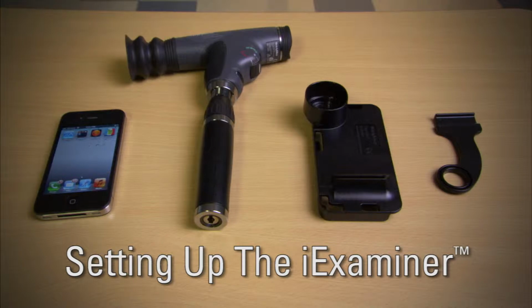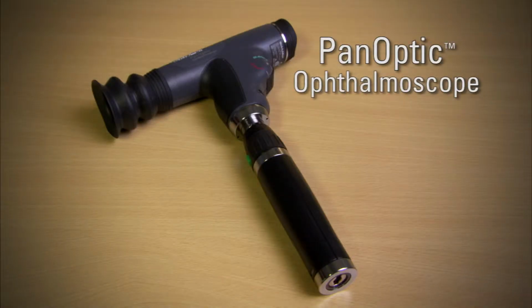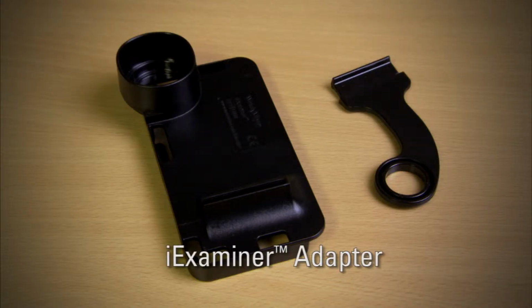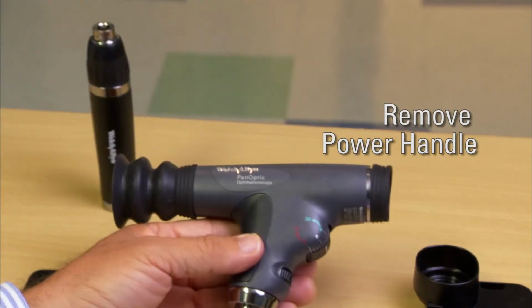Before we begin demonstrating how to use the iExaminer, please be sure you have the following: an Apple iPhone with the iExaminer app installed. This can be downloaded from the Apple App Store. A Welch Allyn panoptic ophthalmoscope, a charged power handle, and the iExaminer adapter, which consists of two pieces, the bracket and the support arm. To begin, remove the power handle from the panoptic ophthalmoscope.